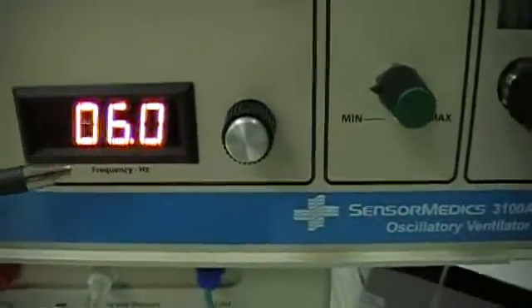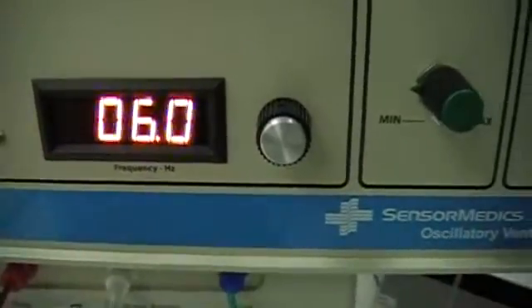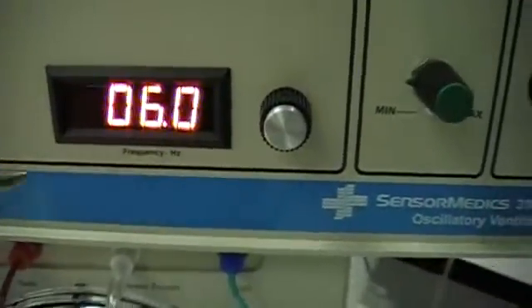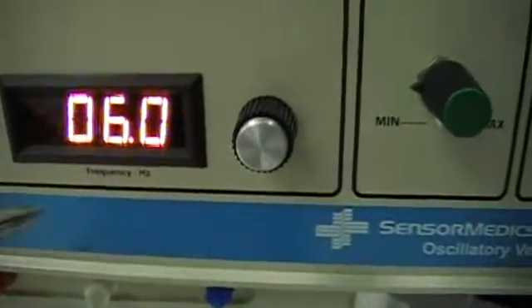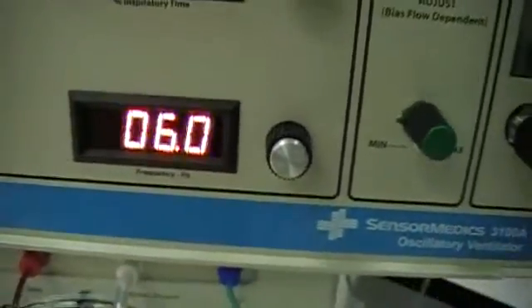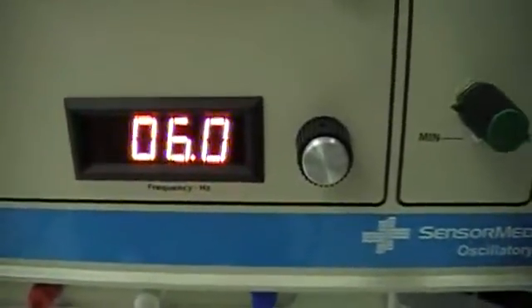One hertz is equal to 60 breaths per minute. So a rate control set at one would be 60 breaths per minute. The current setting here is 6 hertz, which is 360 breaths per minute.